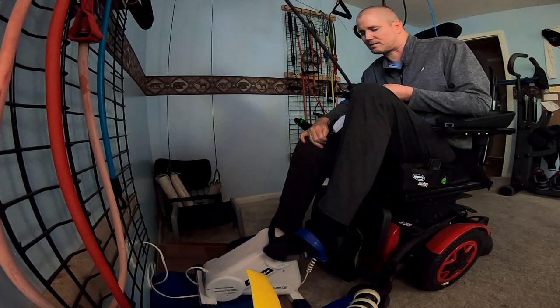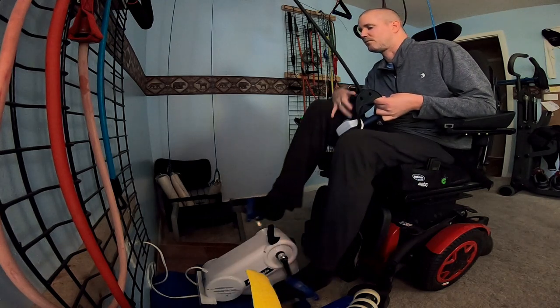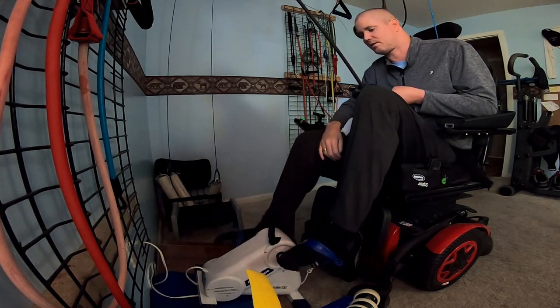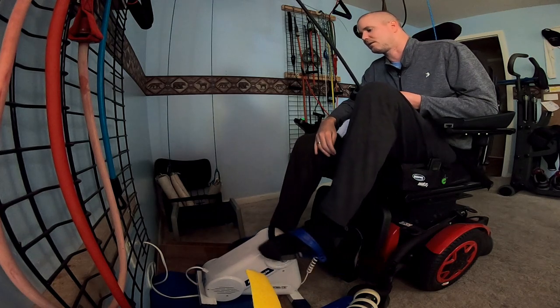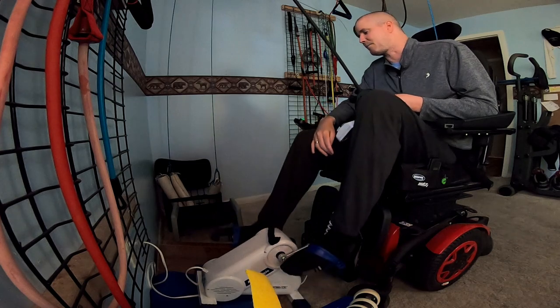And there, it's on. I like to go through slow for a few cycles. Make sure my feet and legs don't spasm, come out and flip it over. That has happened — not a lot, but it can happen.